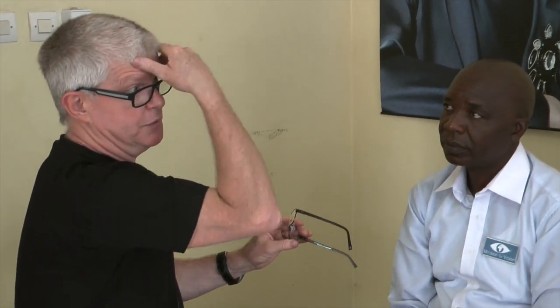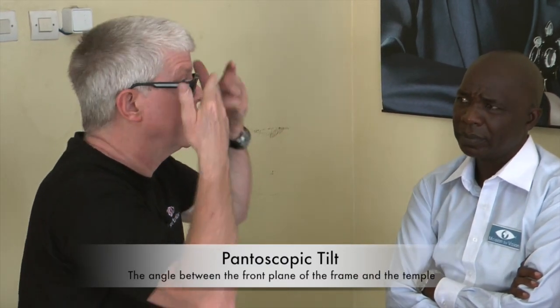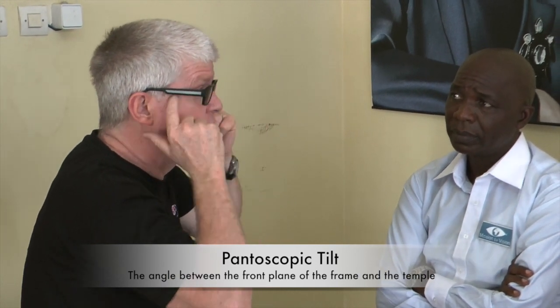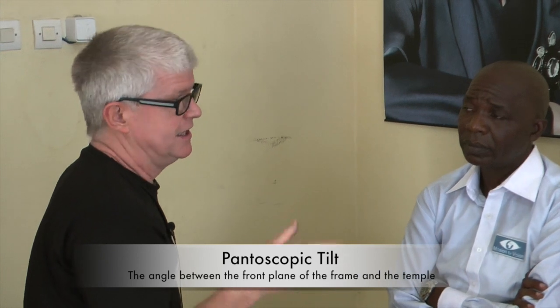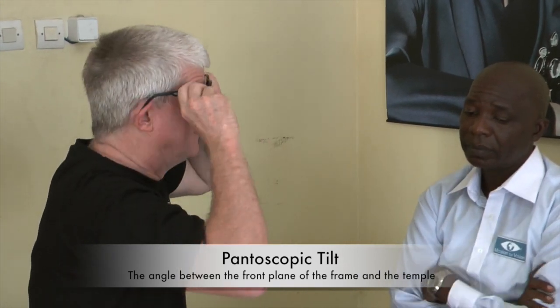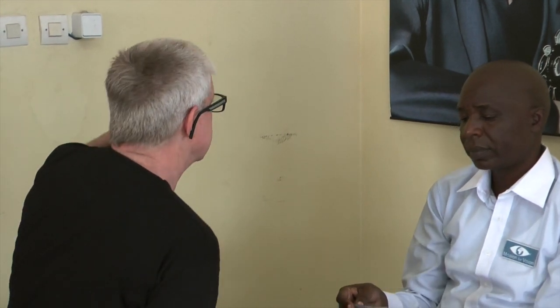The other angle is what we call the pantoscopic tilt, which is the angle of the frame in relation to the face. You should have an angle for most people of about five degrees. If the glasses are sitting flat, it's too flat. If they're sitting too steeply, they're too steep.